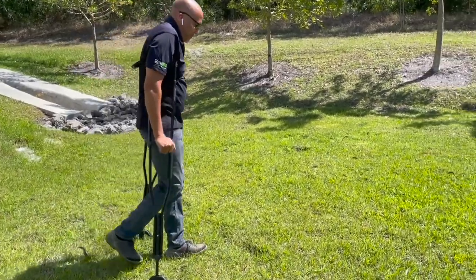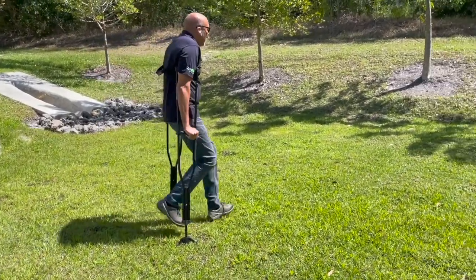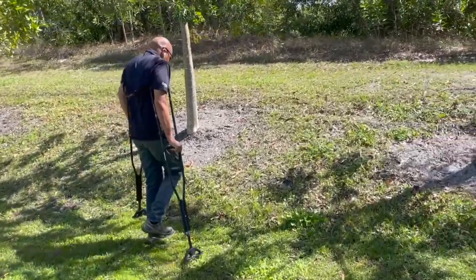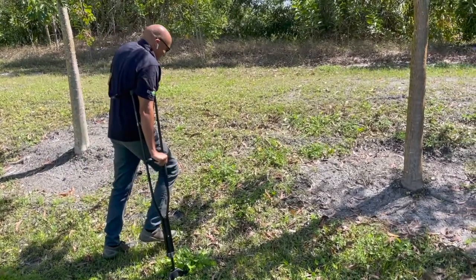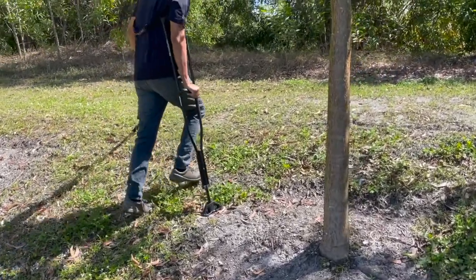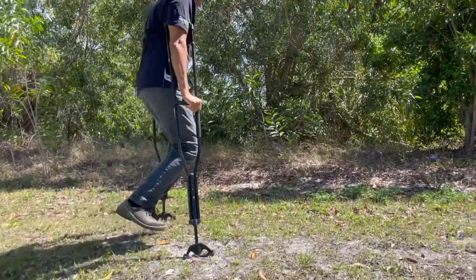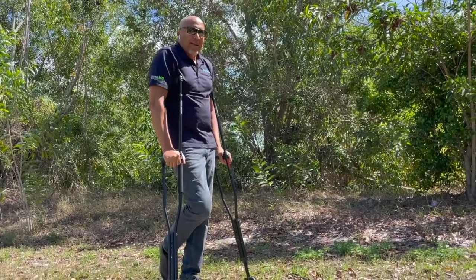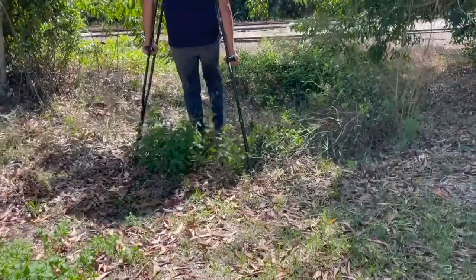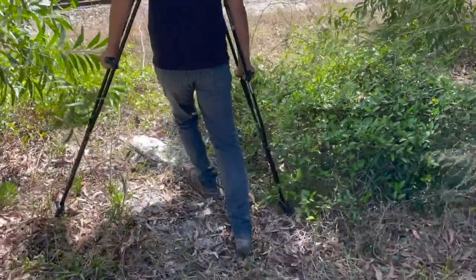Let's simulate being a little more injured — I've had knee surgery, and I've had it lots of times. Uh-oh, I've got to go up a hill. Can I do it safely? Taking my time, putting the pressure on — and I made it! Let's look at some more obstacles. Going right through here, picking it up and over — no problem. One side going to the other — fine. Can I do it sideways if I have to?